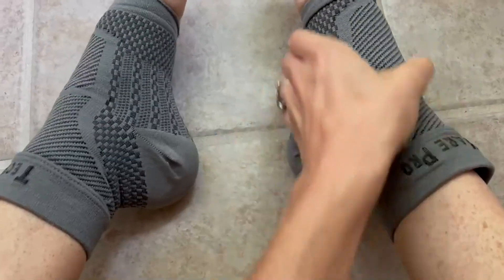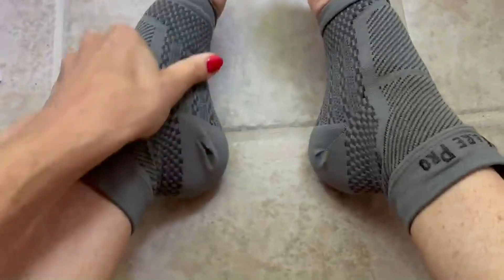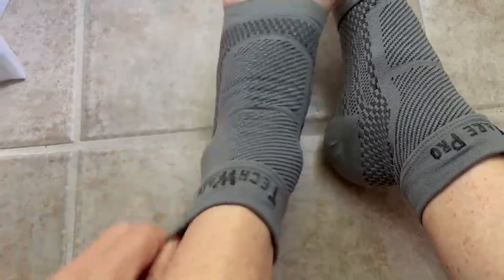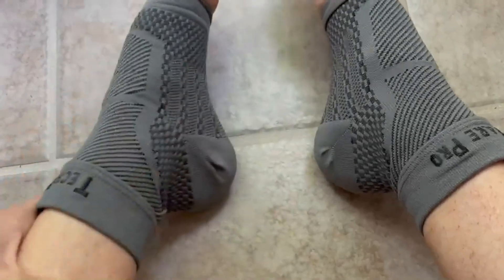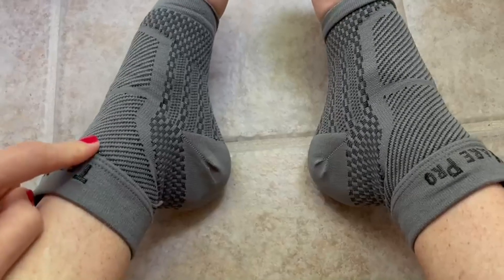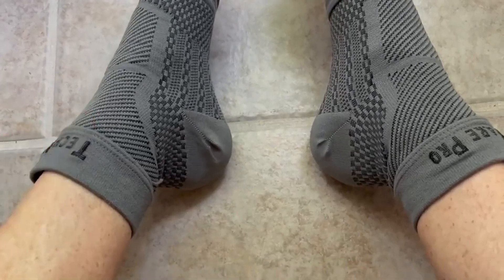Typically it feels painful because there's inflammation. I really enjoyed these — they fit really nice, they aren't too tight and not too loose. The first time I bought them was in Arizona, I had them shipped and ordered from Amazon.